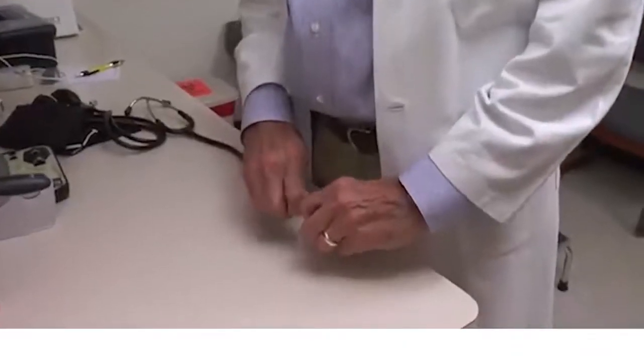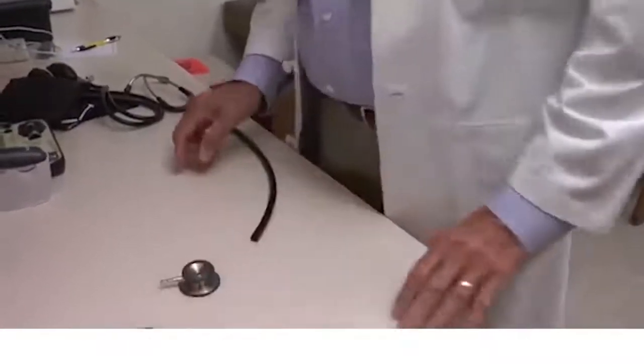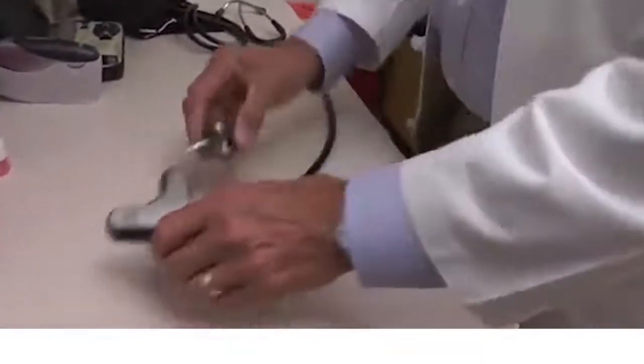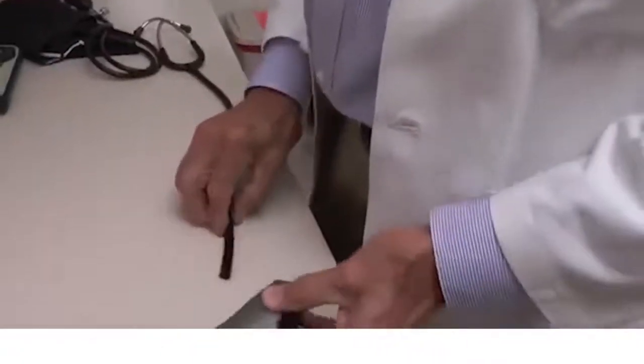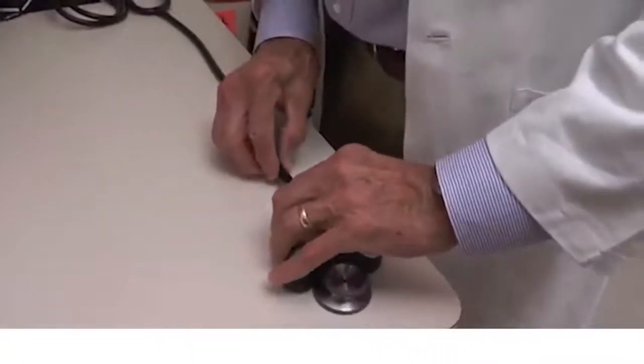Cardio Sleeve's intuitive design enables its attachment to any standard stethoscope. The chest piece is detached from the tubing and the Cardio Sleeve is then easily inserted between the chest piece and the tubing.